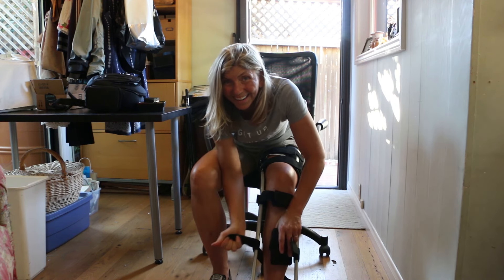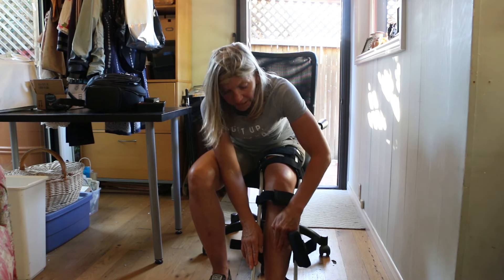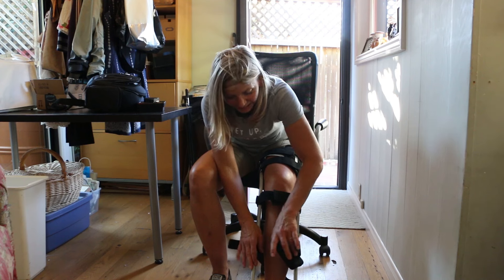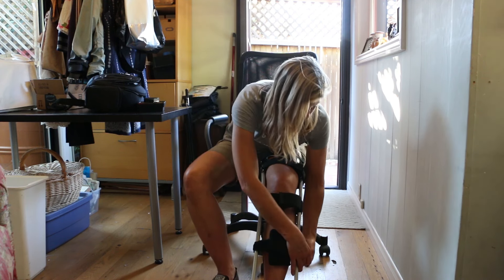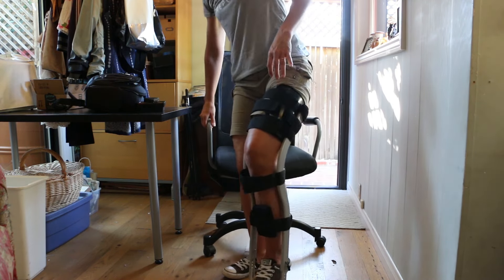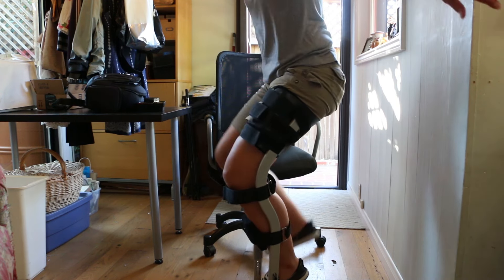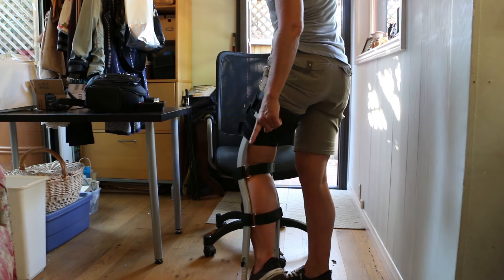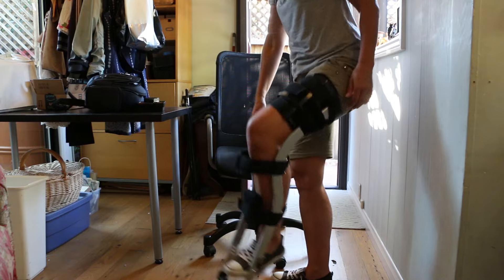This front pad — I don't like it either. I know it's there to keep your leg from swinging forward, but I have a very sensitive shin. I've probably done a lot of damage to it over the years. You tighten it so you can sit back in it, almost balance on it. Those straps are just to keep your leg from moving around.